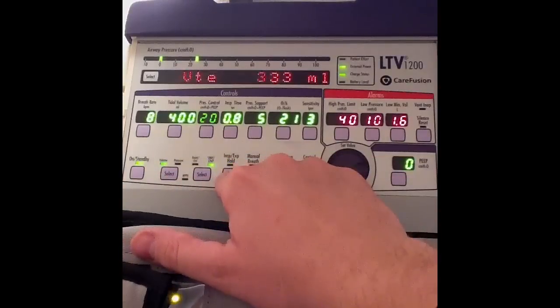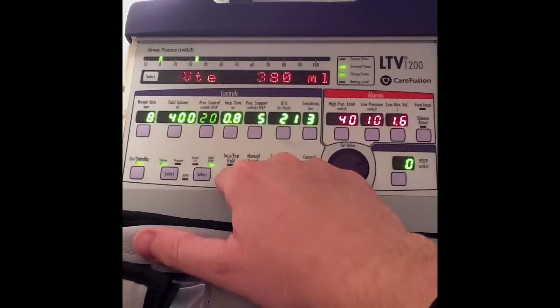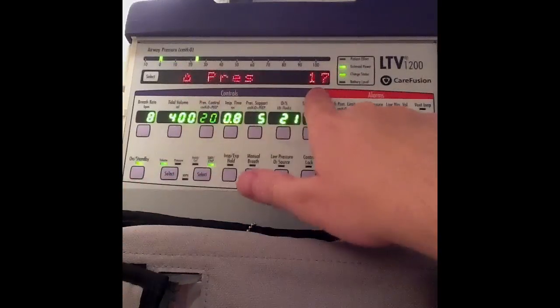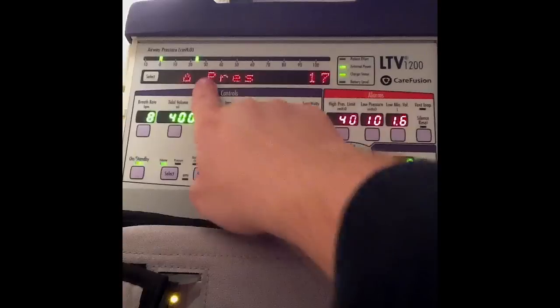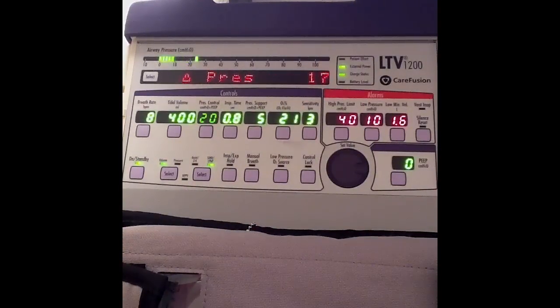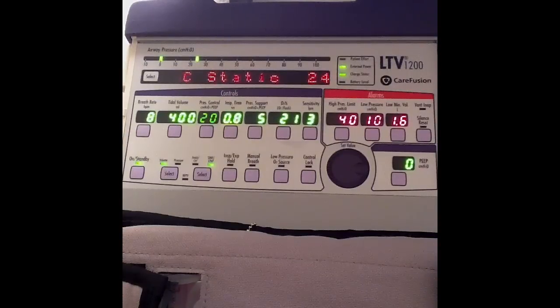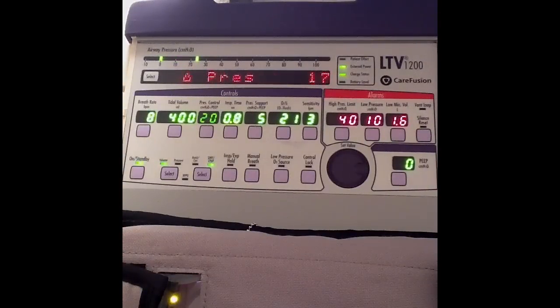I'm now back in volume control. Hitting the button again, I can now toggle between inspiratory hold and expiratory hold. I'll select inspiratory hold and hold the button down — it gives me my plateau pressure. Releasing it, the ventilator calculates my static compliance, plateau pressure, and overall delta P. I can also do the auto PEEP assessment from here. Hopefully this helps with the basic concepts of the LTV 1200, mainly how to set up and initiate initial adult ventilation.